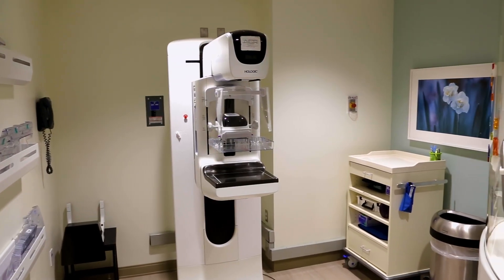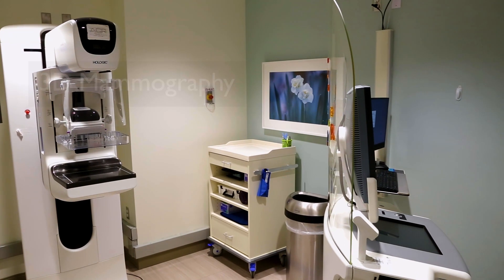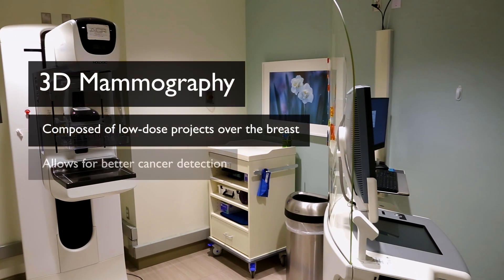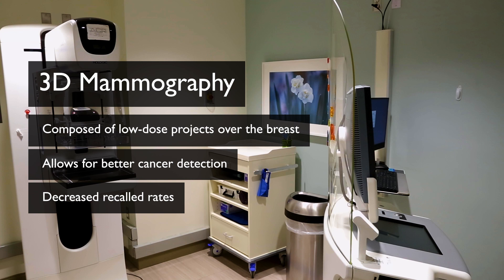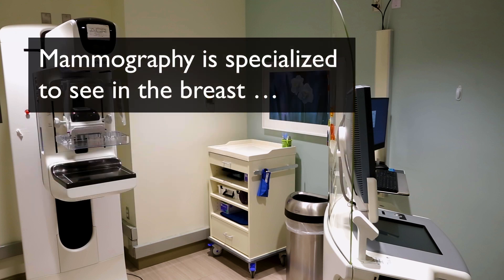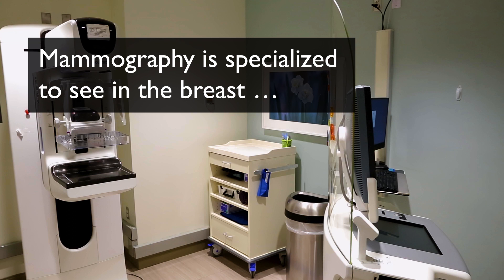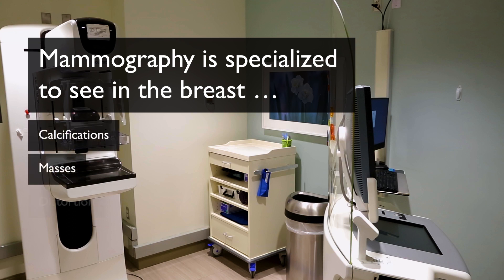The first modality we're going to talk about is mammography. There's both 2D and 3D mammography that can be performed. 3D mammography is preferred because it is composed of multiple low dose projections over the breast that allows for better cancer detection and decreased recall rates. Mammography is specialized to see specific findings in the breast, including calcifications, masses, and distortion.